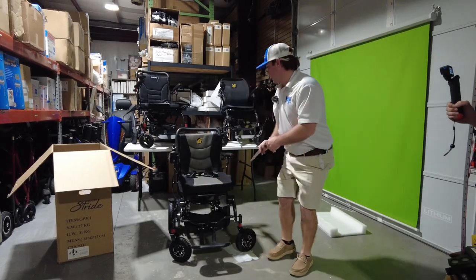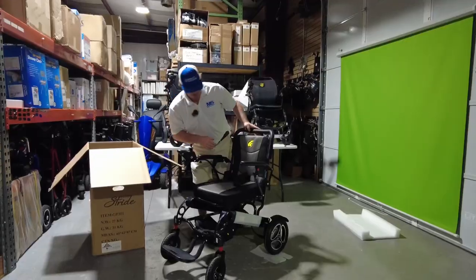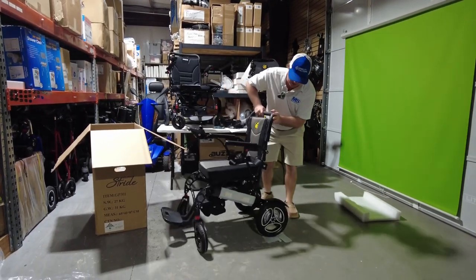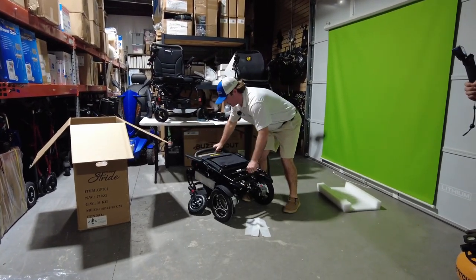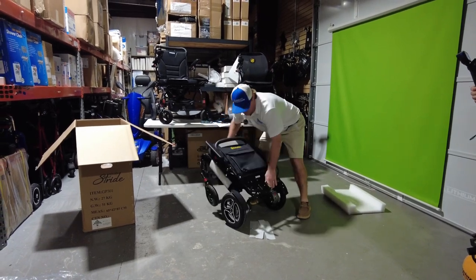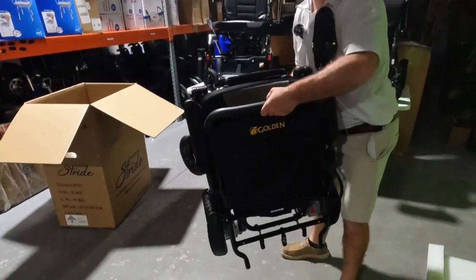Tires are much bigger, higher back, and you fold it up pretty much the same way as all the other ones. We'll show you all that. You can lean it back — it has like a little kickstand. Fold this up, pick it straight up.